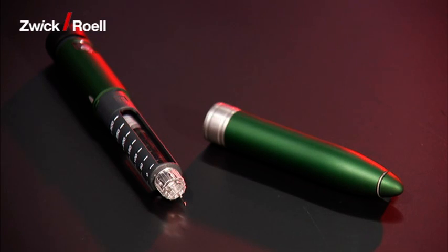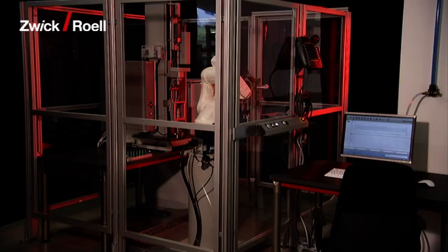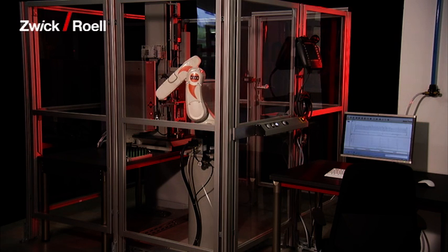The specimen is an ordinary commercial insulin pen. The system is extremely easy to operate.